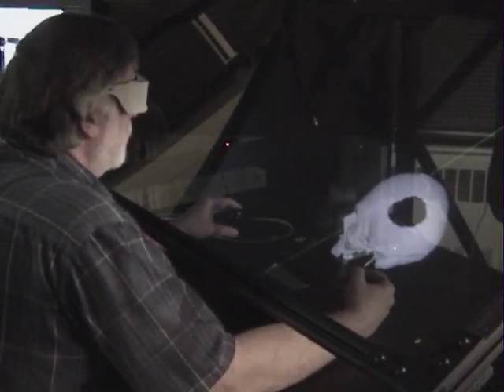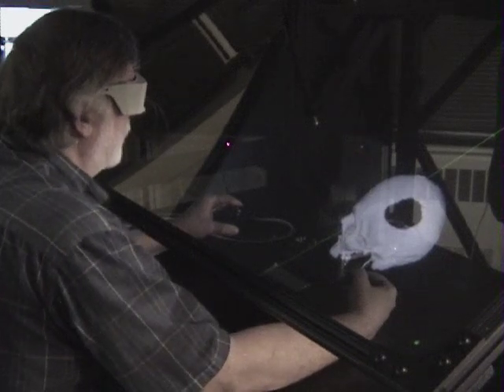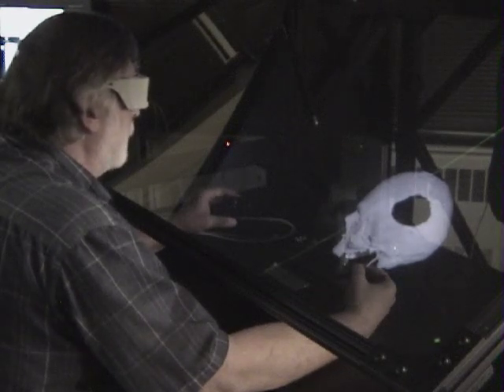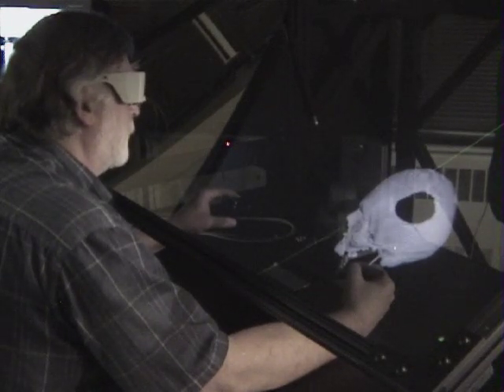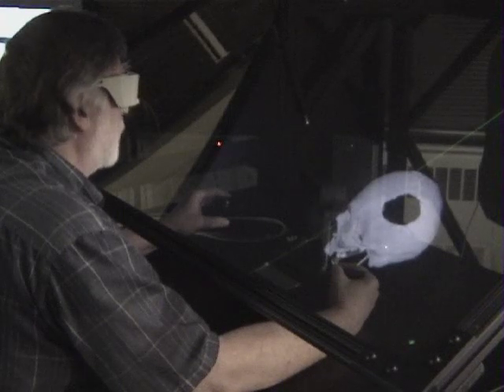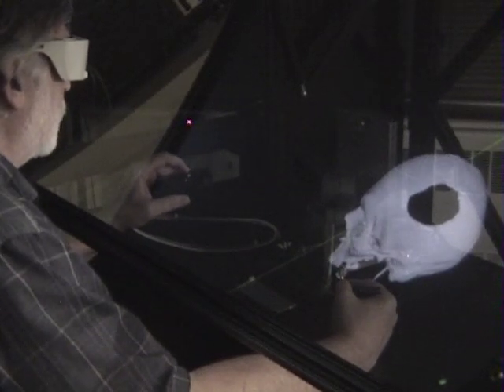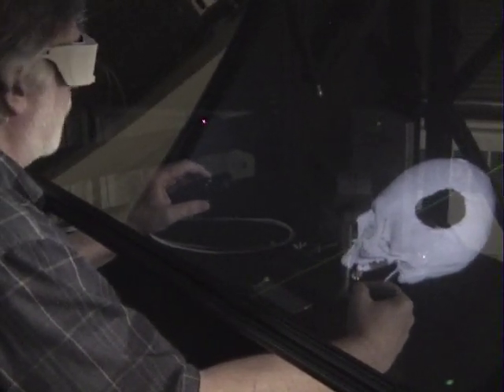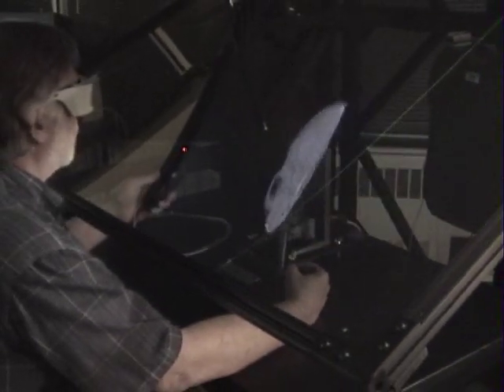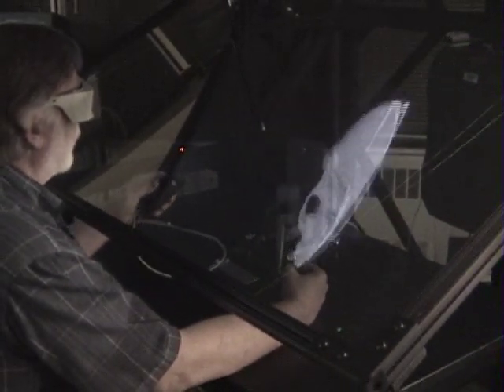I'd like to describe the tools available to the operator of the PARIS system when designing a cranial implant for a large cranial defect. The image you see before you is a skull created from CAT scan information. The first tool I have at my disposal is the wand that I hold in my left hand. I can grab the object and turn it in any orientation I choose. You can see that the skull is cut on the sagittal plane, cut in half.